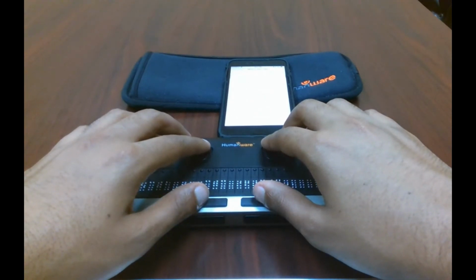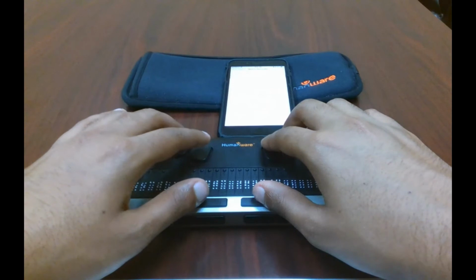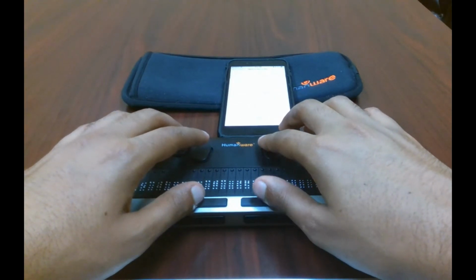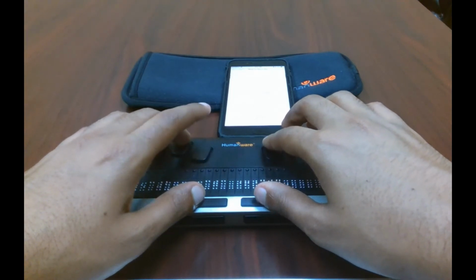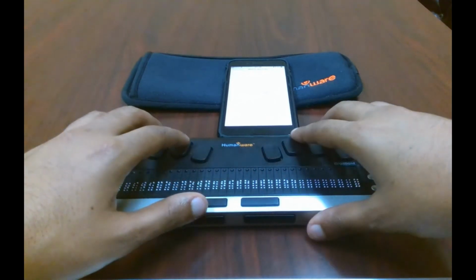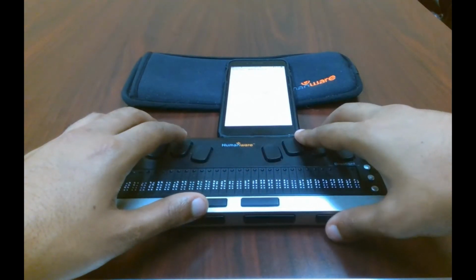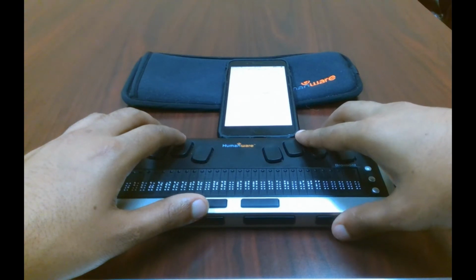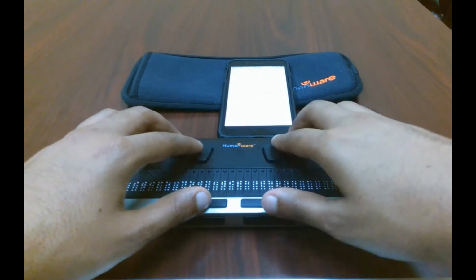So what it's saying is that it's a dots 2-3-4 chord, which means that it is an S chord. So let's go ahead and press that. And now we're in the status bar at the top of our screen. Verizon wireless network, 3 of 3 Wi-Fi bars, 10:57 p.m., region tracking on, alarm set, Bluetooth on, 63% battery power.